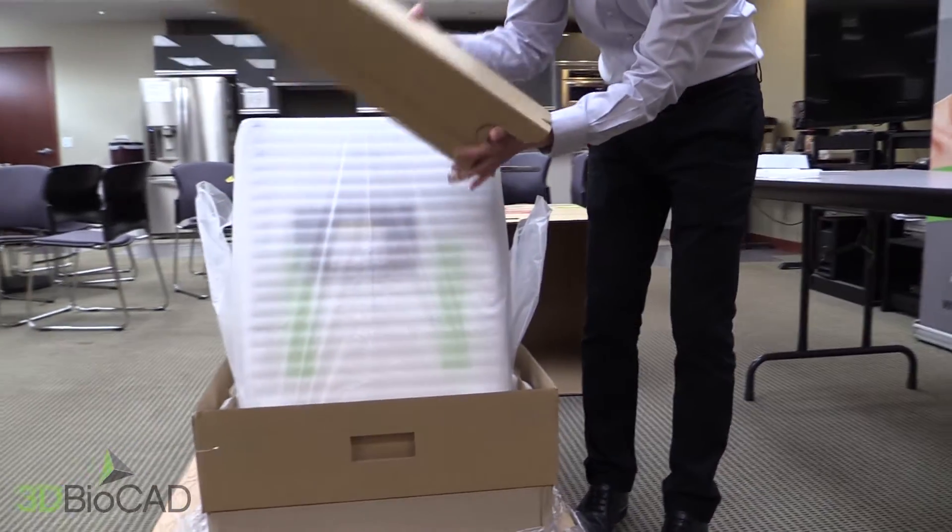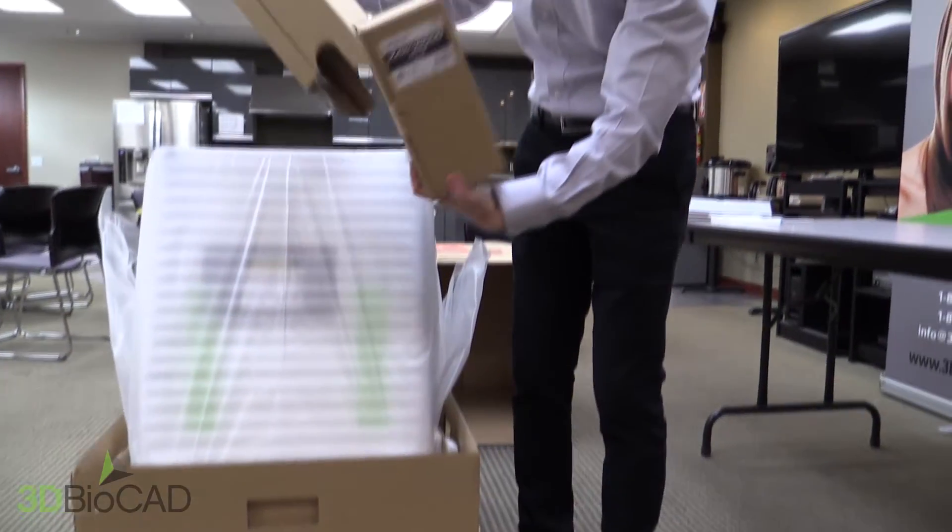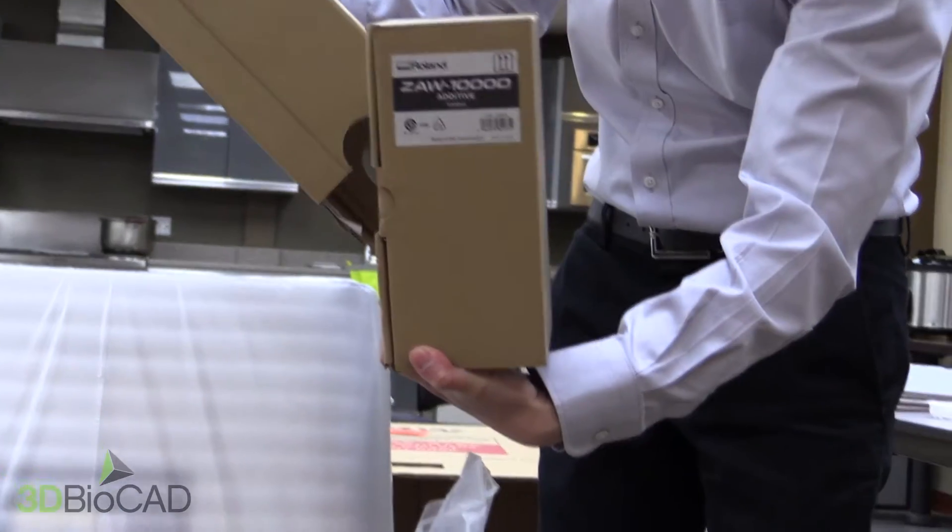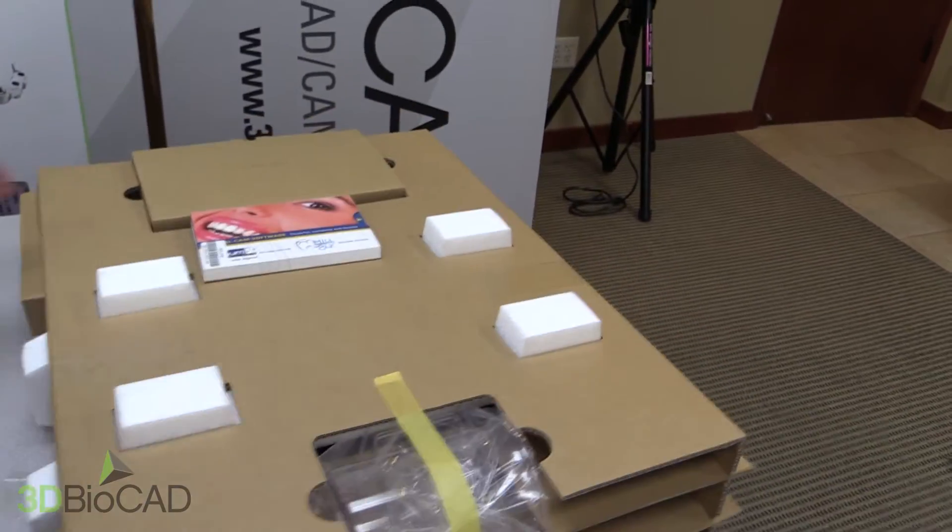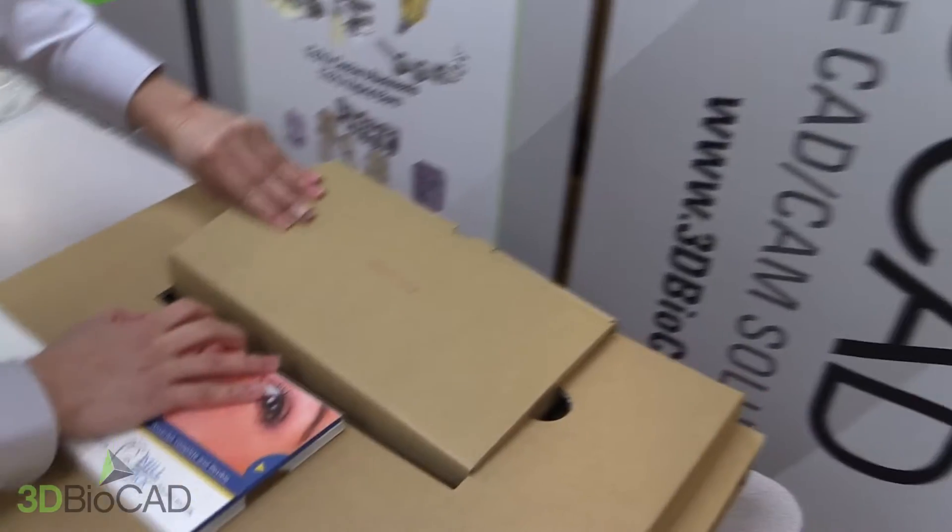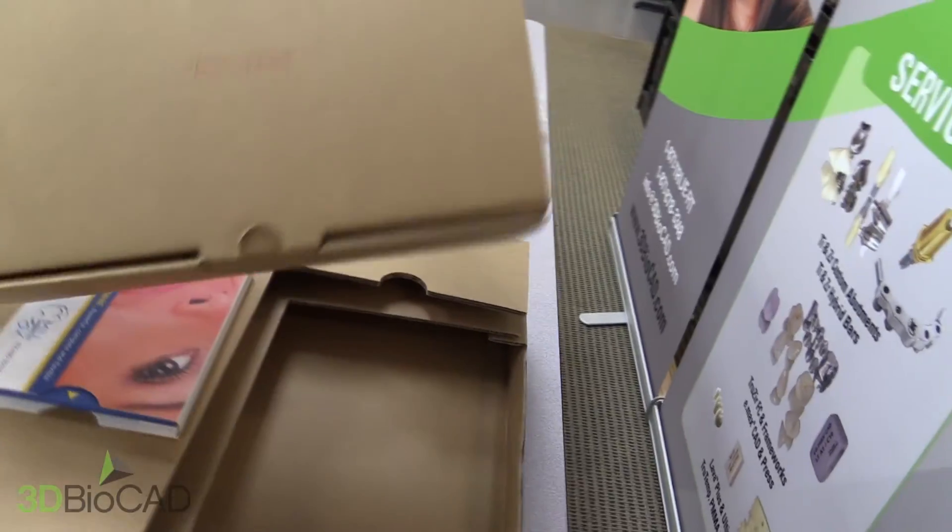In the cardboard pillar on the side of the unit contains the coolant additive. Visible from the top of the cardboard cushion, you'll see the measuring cup and the accessories box and the Sum3D software.